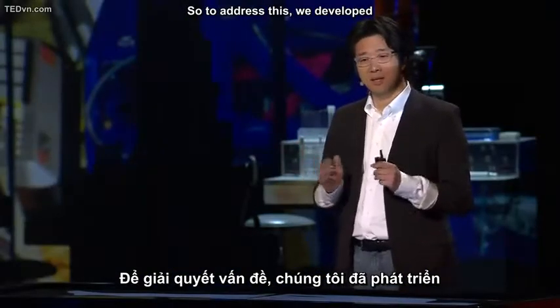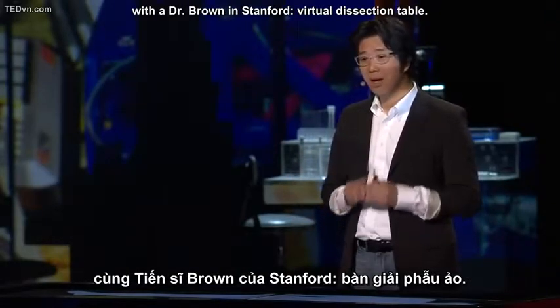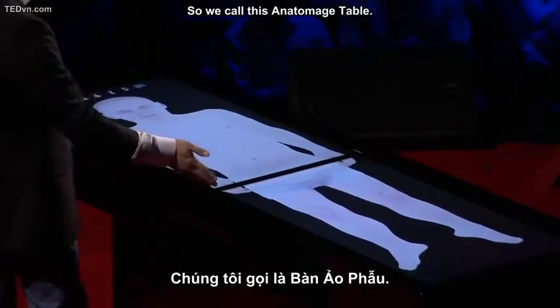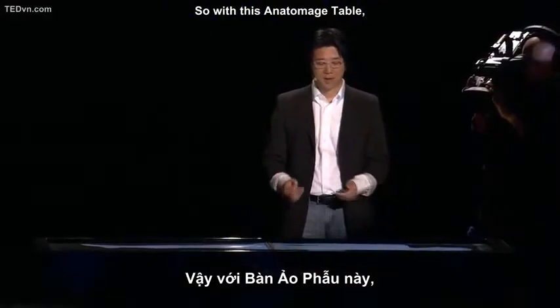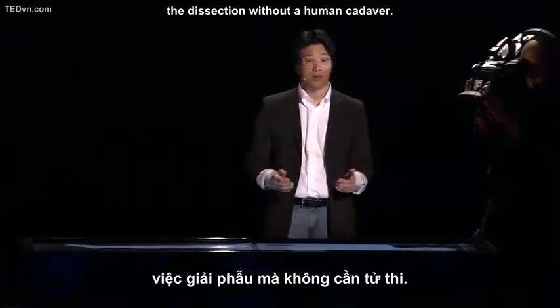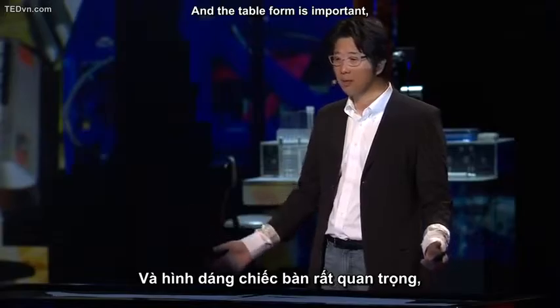So to address this, we developed, with Dr. Brown at Stanford, a virtual dissection table. We call this the Anatomage Table. With this Anatomage Table, students can experience dissection without a human cadaver. And the table form is important.